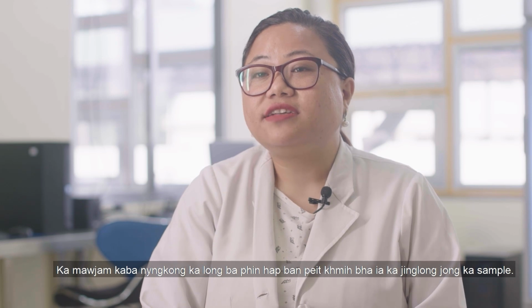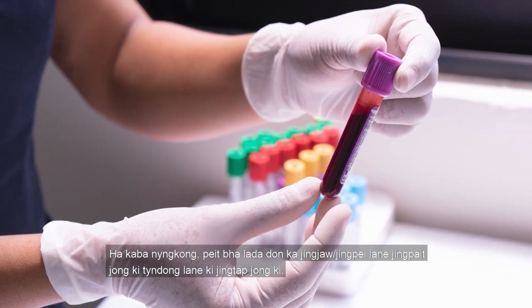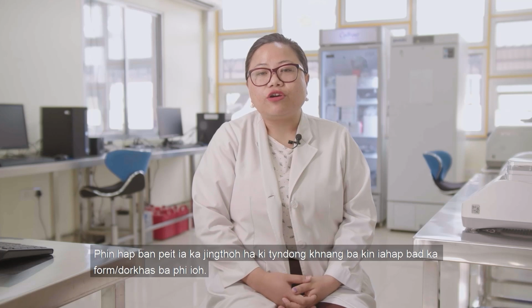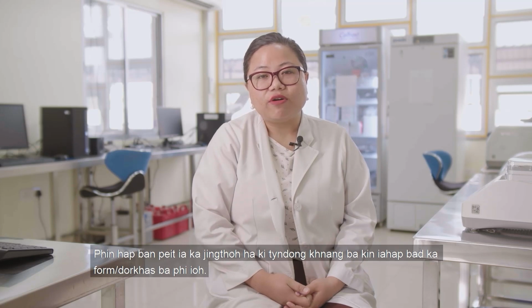The first step is you have to check the integrity of the sample. First of all, look for any kind of leakage or any break in the vial or any break in the cap of the vial. You're going to look at the labeling of the vial as well, so that it matches the requisition form that you receive.